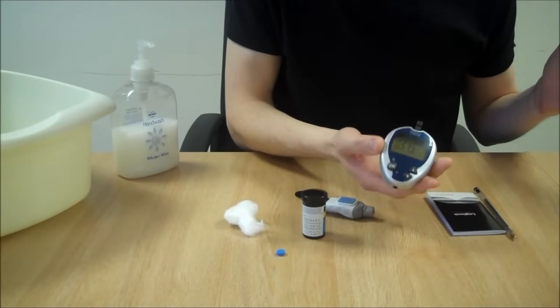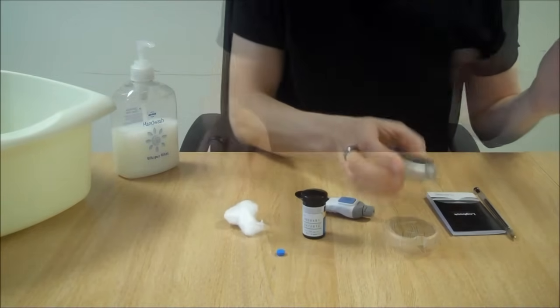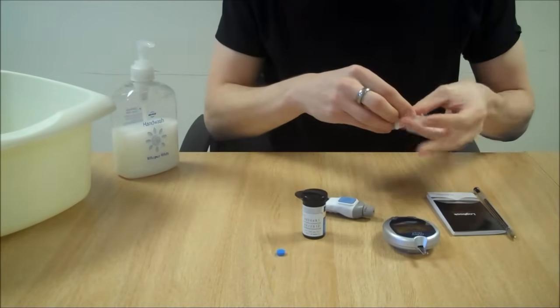3.6. I'll need to treat that with some glucose tablets. Just clean your finger. Clean the blood off the fingers.